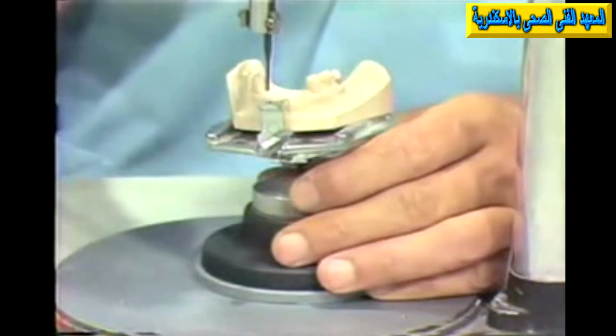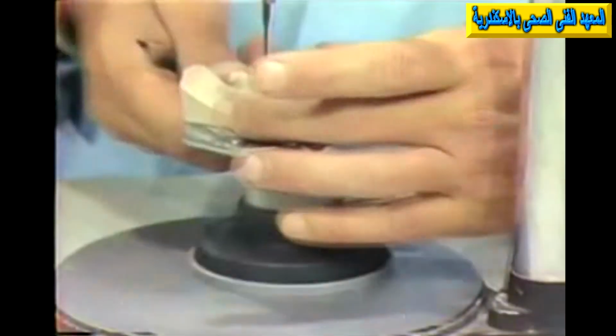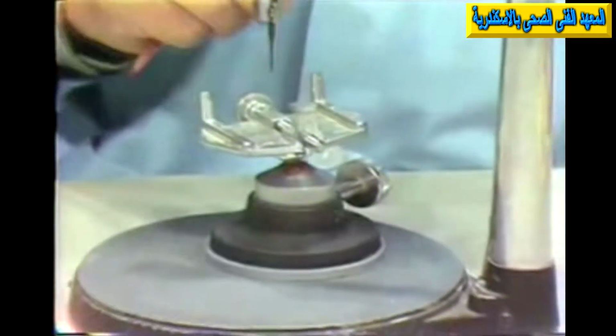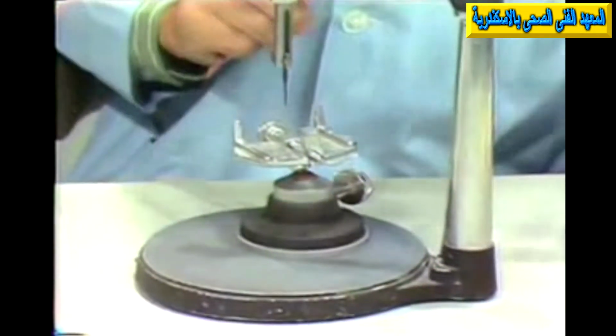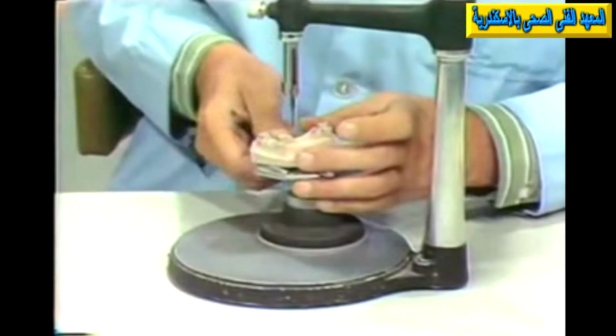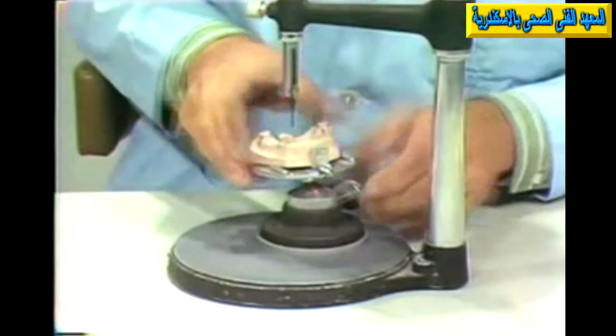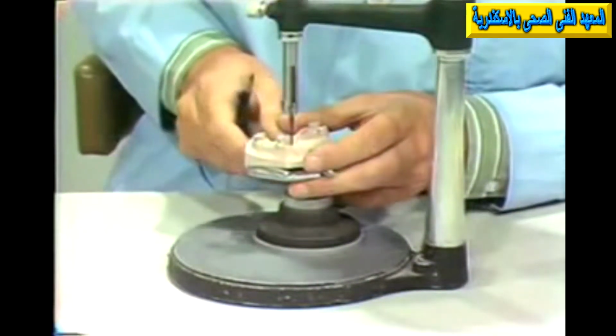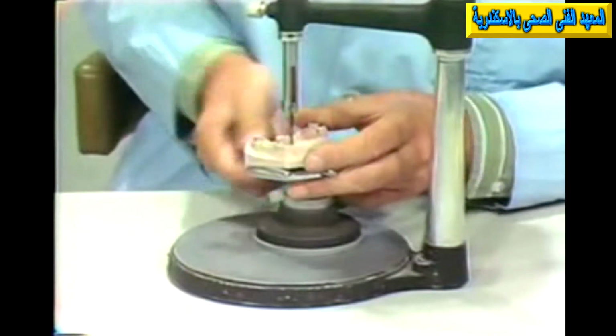So the path of insertion and removal definitely does influence aesthetics, and not only in tooth form, but also in the possibility of clasping. If it happens that, let me change cast again here, if it happens that we choose a path of insertion which requires the placement of a clasp in an anterior area, it could be that it might be necessary for us to place a clasp in an area which would be very, very conspicuous.